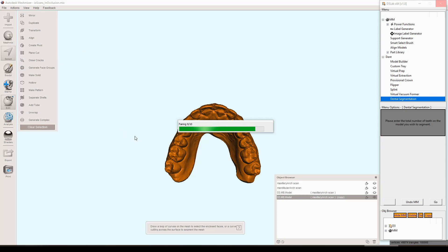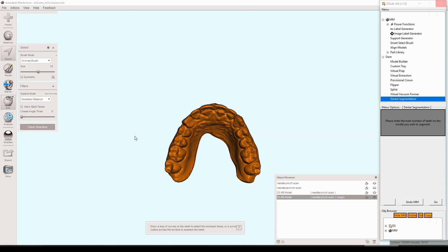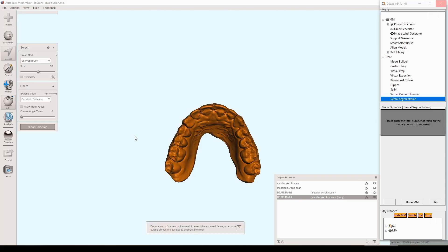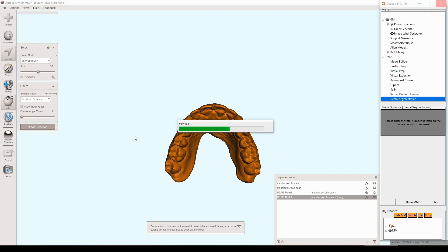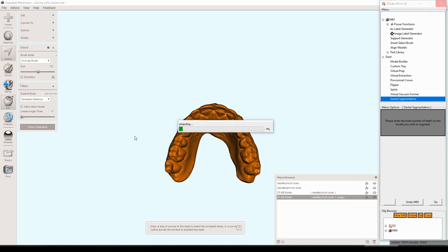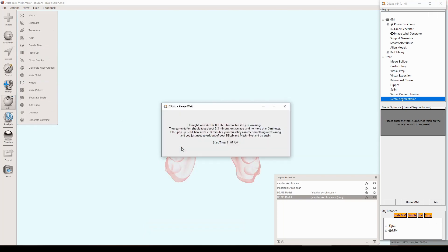It's going through doing some specific remeshes, some specific reduction in the triangle count to get it to an accurate yet manageable size so when we run it through the segmentation tool it doesn't take forever. The segmentation tool is just a bunch of number crunching. It takes all of the vertices and triangles into account, goes through each one and determines the angles between them. The less number of triangles, especially if it's in the tens of thousands, then it's a whole lot quicker and more manageable, so it got it to a manageable triangle count while also trying to maintain as much accuracy as possible.